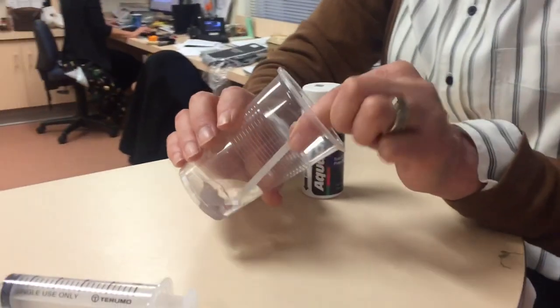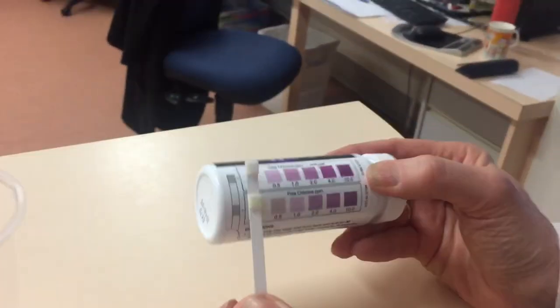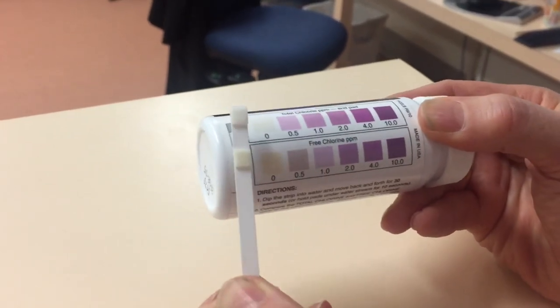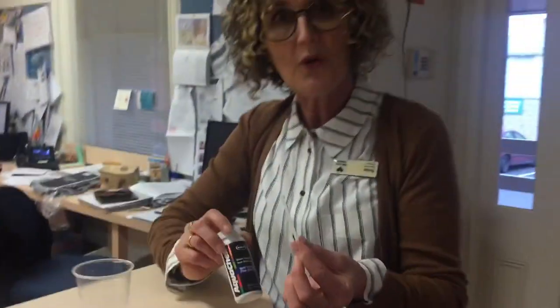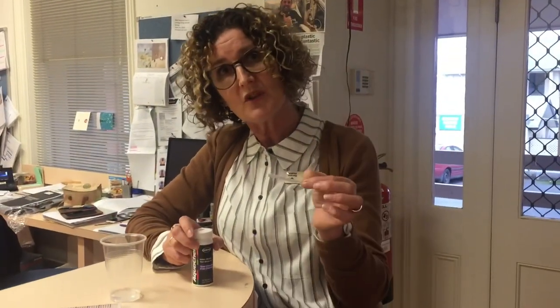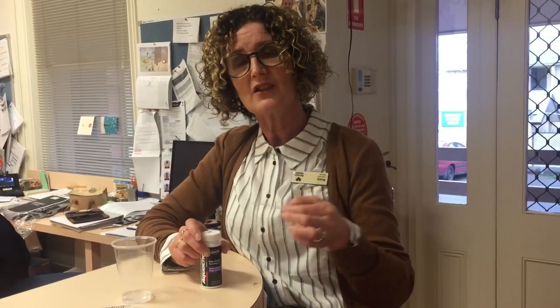That's 30 seconds. Looking at our comparator, it's perfect — there's no chlorine in that machine. Before you dialyze anyway, you're going to put the machine into a hot disinfect, so you get that added layer of protection. You can be assured there will be no chlorine in your dialysate fluid circuit next time you dialyze. Easy peasy — and remember, you can always ring the unit if you need further instruction.